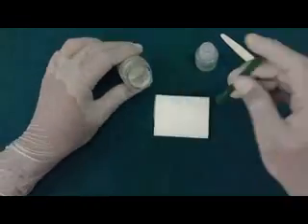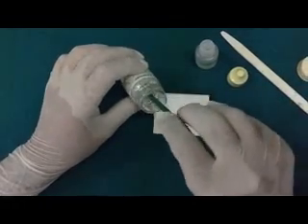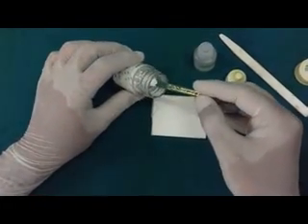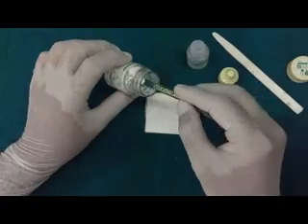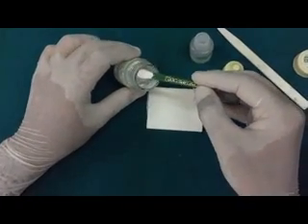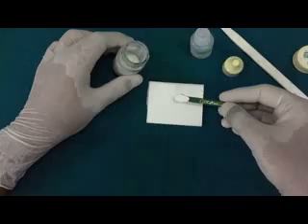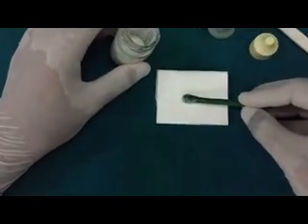When we mix glass ionomer cement which is a conventional glass ionomer cement meant for restorative purpose, the consistency of the mix is a little more thicker or more viscous compared to the cement mix used for luting consistencies. Here we are going to mix the cement for restorative purpose.